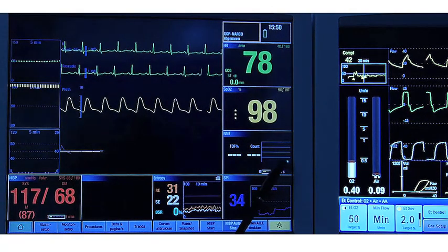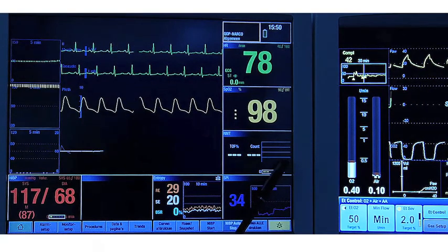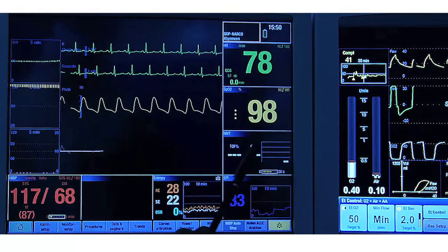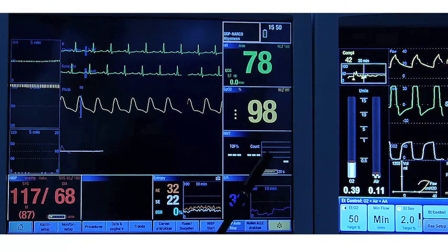Again, you see here, someone touches and we see a late, the fourth, the fourth stimulation did give an answer, and this is an artifact. So the count should be zero or even not to be displayed.